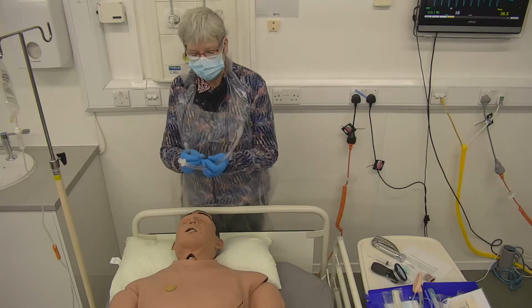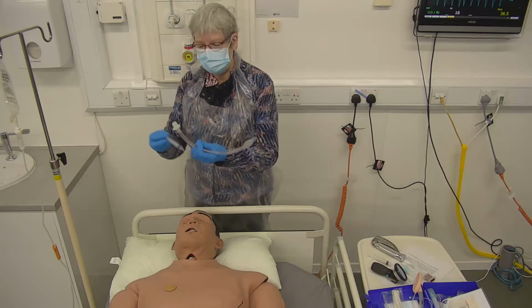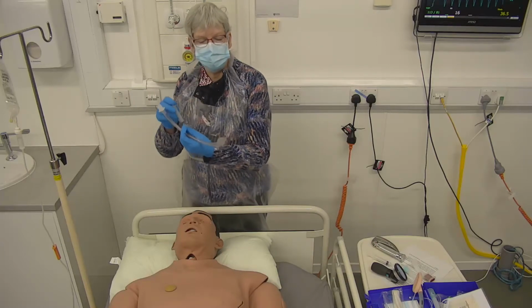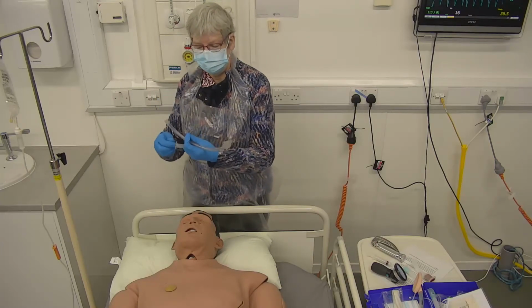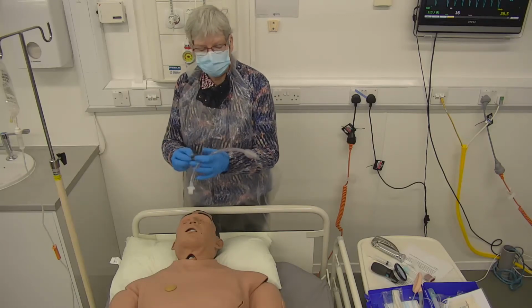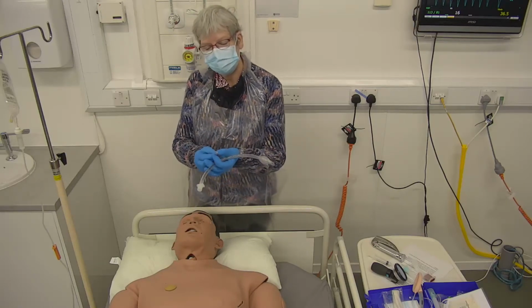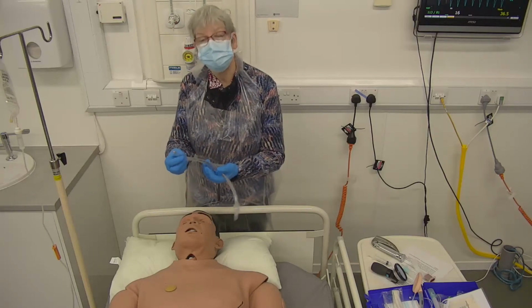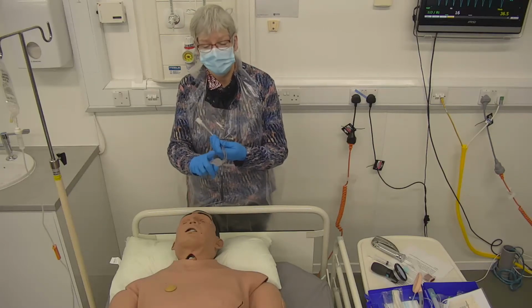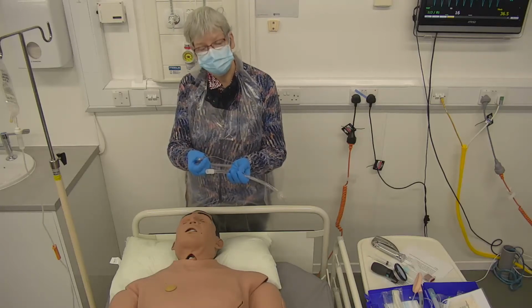the body. So if I just try and inflate that, maybe you can see that the little balloon has gone up. Now what is happening there is reflected by what is happening here, and this lies outside of the person. So you've got a very good idea of how inflated that is by how inflated that little balloon is.